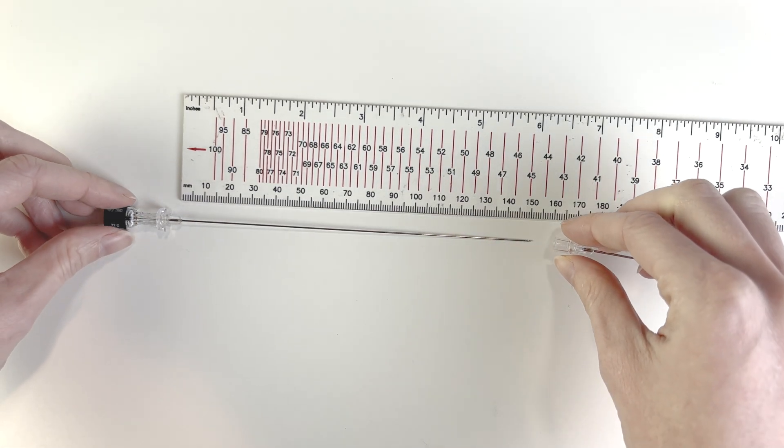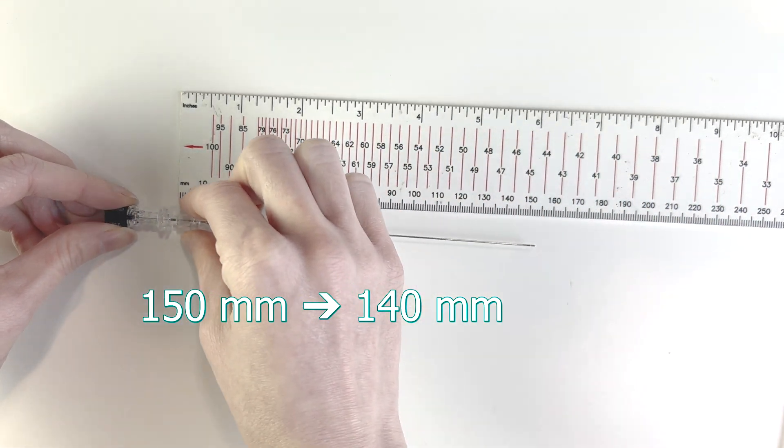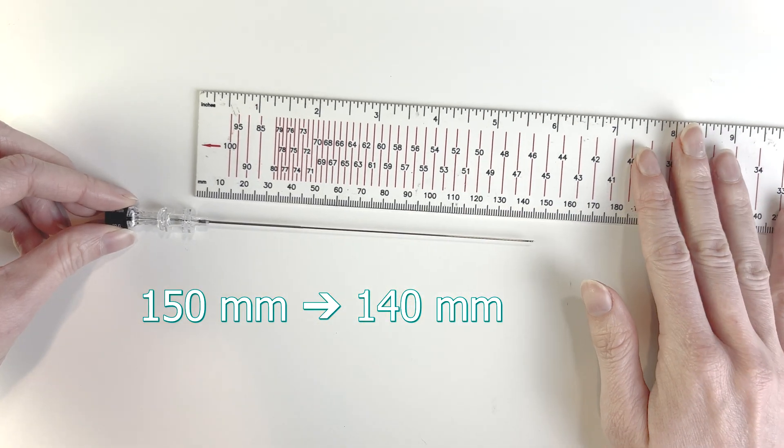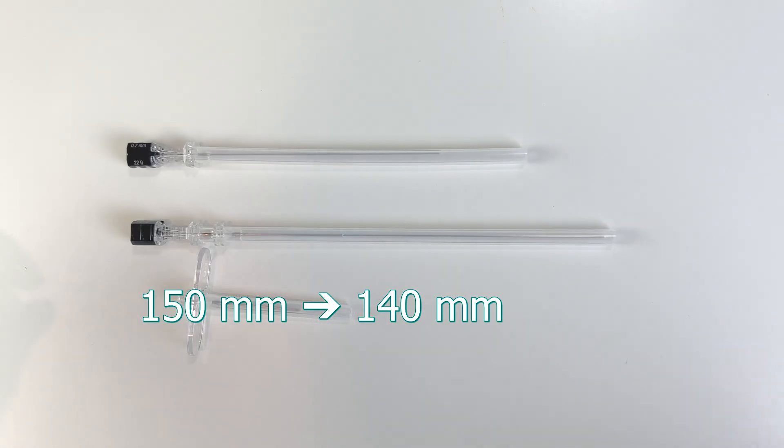Keep in mind that when you do use the introducer, you lose about one centimeter of length. And that's only going to be a problem if you have a very obese patient.